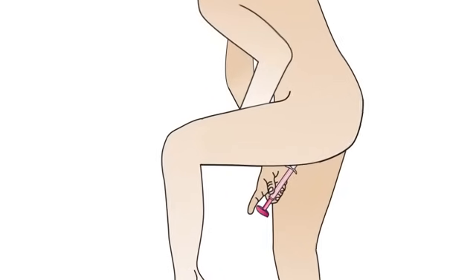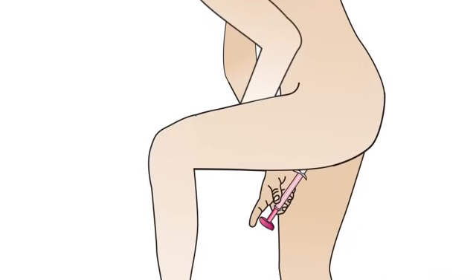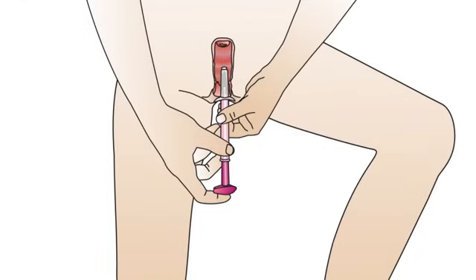Spread your labia with one hand and with the other, insert the Evelyn brush into your vagina until the wings touch your labia.